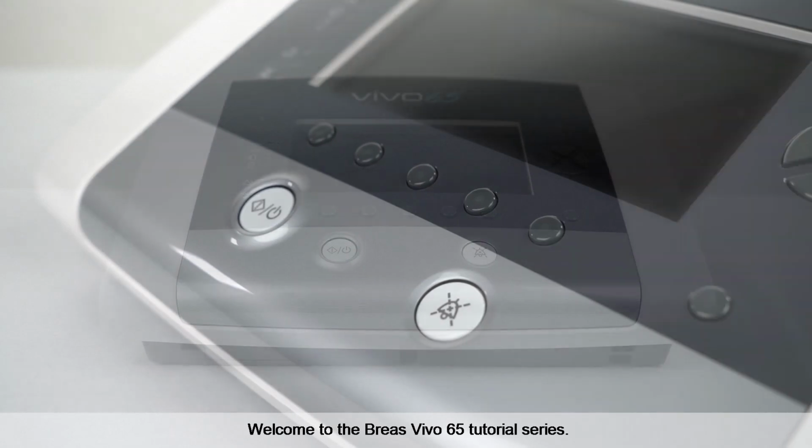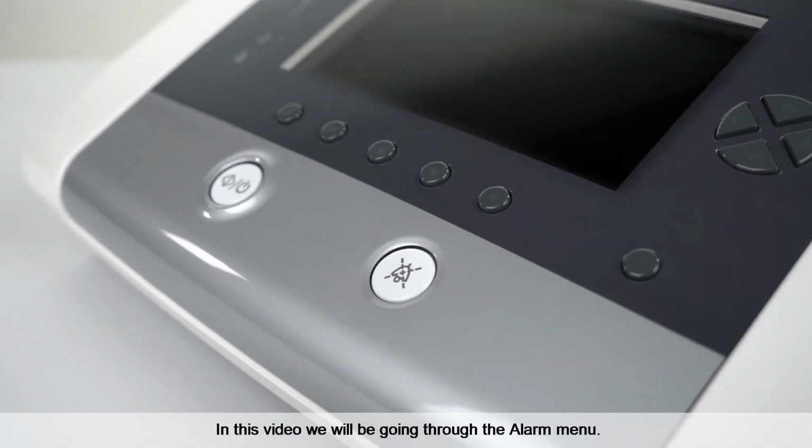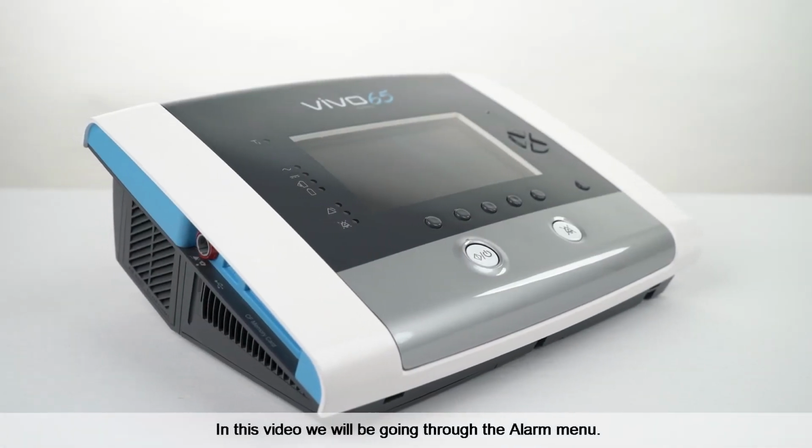Welcome to the Vivo 65 tutorial series. In this video, we will be going through the alarm menu.